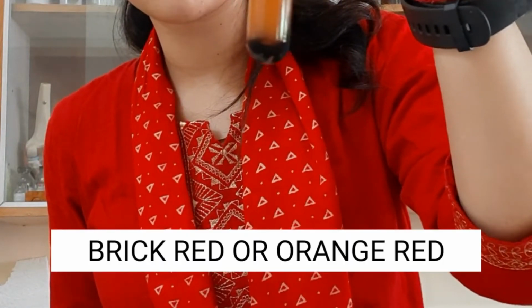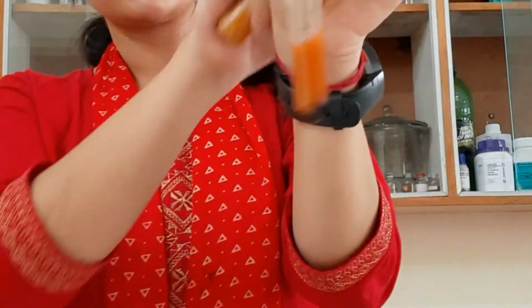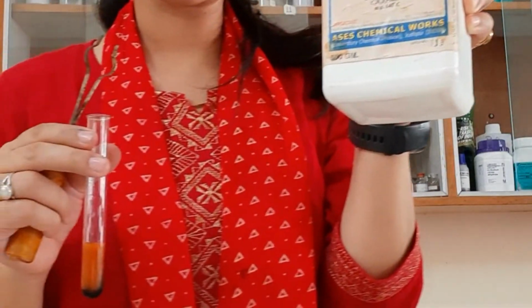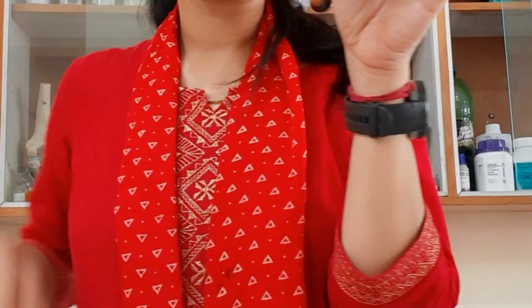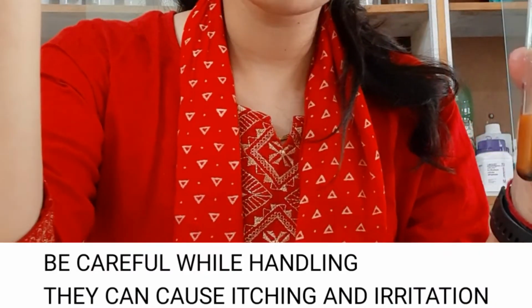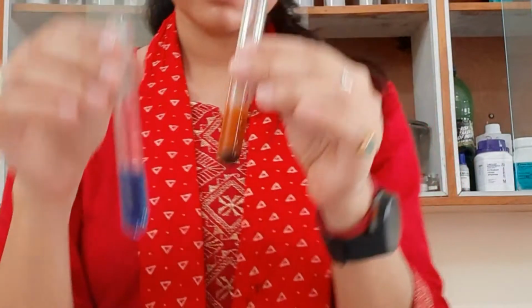That is not exactly red, but brick color, because in this sample I have added dextrose, I have added glucose in the urine sample. So now my sample has changed its color. It means there is the presence of glucose in the urine. So this is the absence of glucose, and this is the presence of glucose in the urine, which you can prove through Benedict's test.